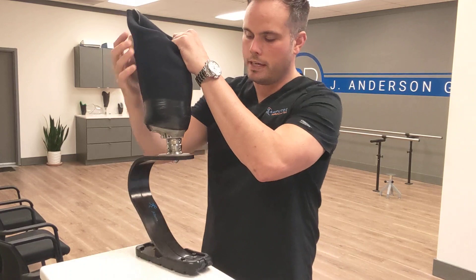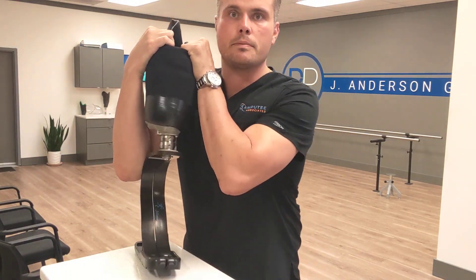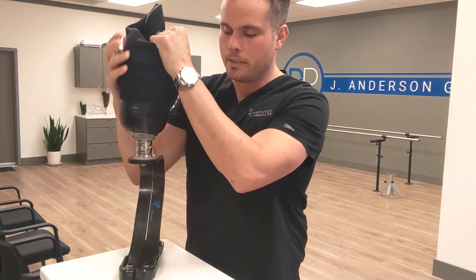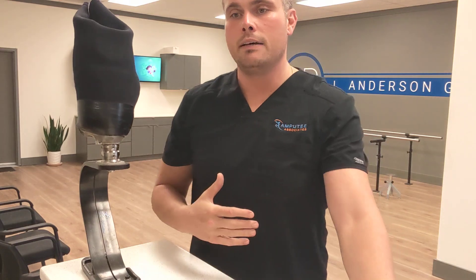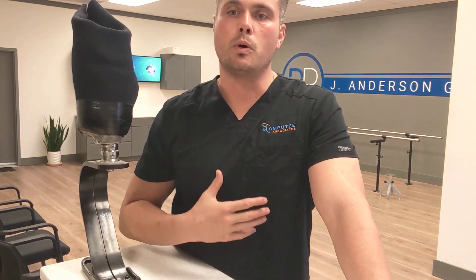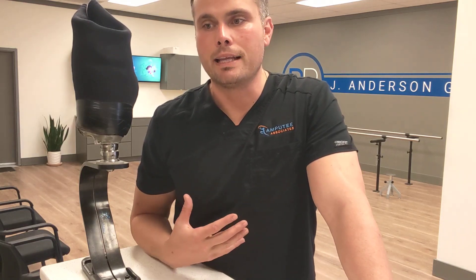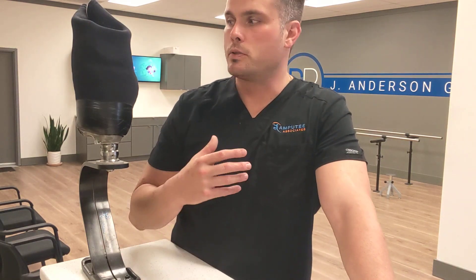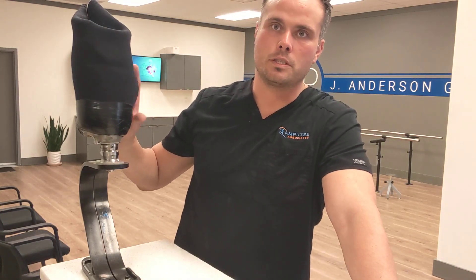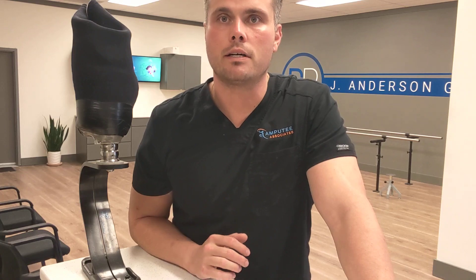The hopeful advantage is that the patient at slower speeds does have some heel contact ability. He can run on the outside part of his foot, the inside part of his foot. If he's on loose gravel, there's more of his foot touching the ground, and hopefully he's going to have more stability with less force transferred to his very short residual limb. We look forward to fitting this and we'll keep you posted on how it goes. Thanks.